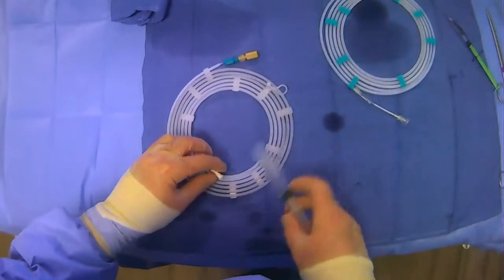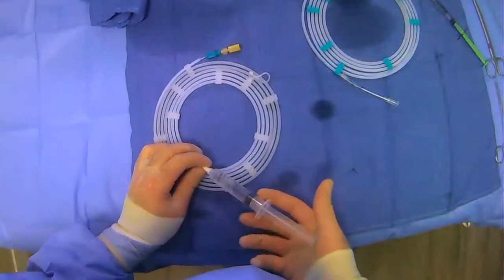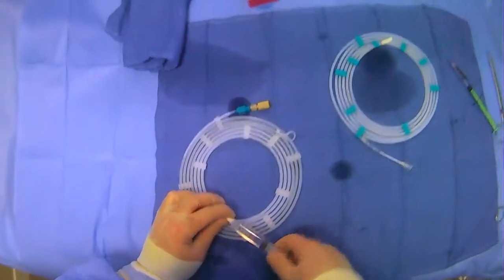And then for the actual snare, there's only a hookup really for the actual outside of the snare. So you'll just flush from that direction.